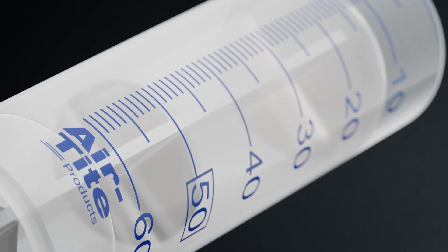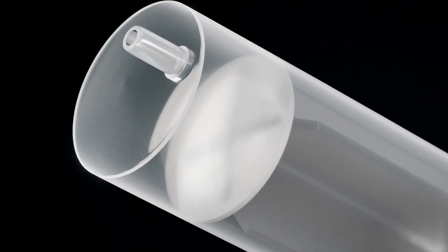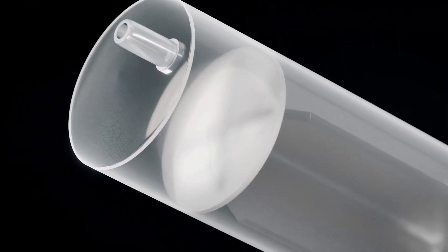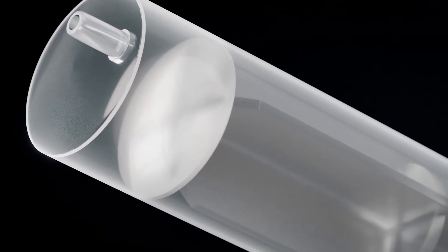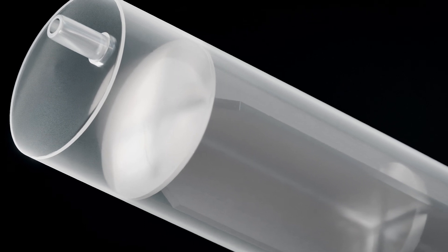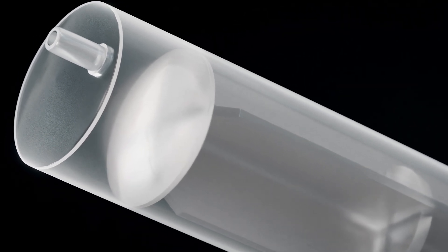With numerical marks being shown every 10 milliliters, the all-plastic, high-density polyethylene plunger contains no rubber tip and therefore no silicone oil, yet the plunger still glides seamlessly through the barrel. This makes it an ideal option for sensitive applications.